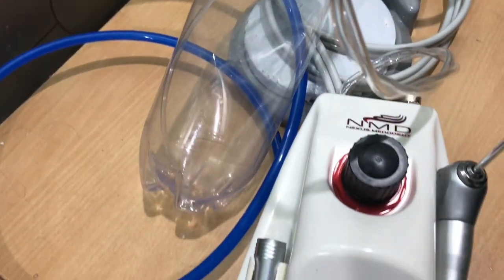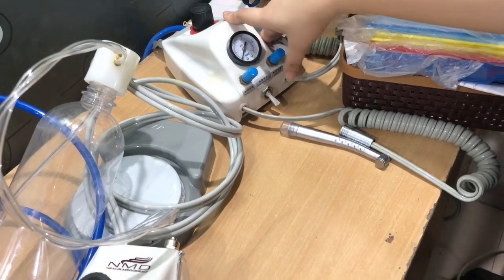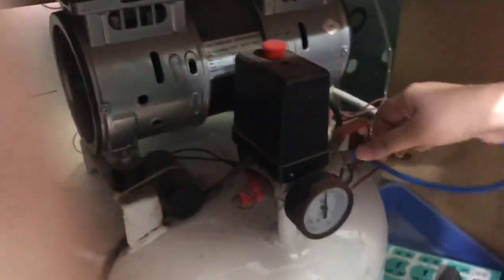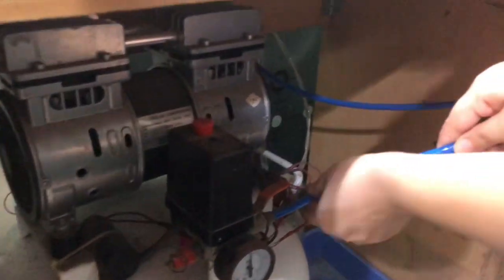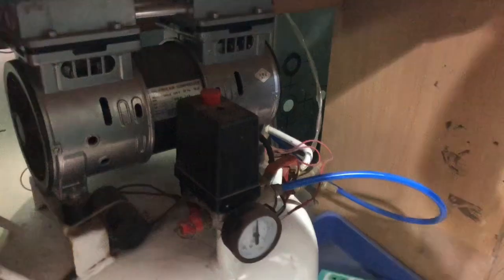So let me show you how it works. I am already having this portable air turbine unit. You can see it's already attached to the compressor. So this is the blue tube which I was talking about. You need to place it here and you can see up here.